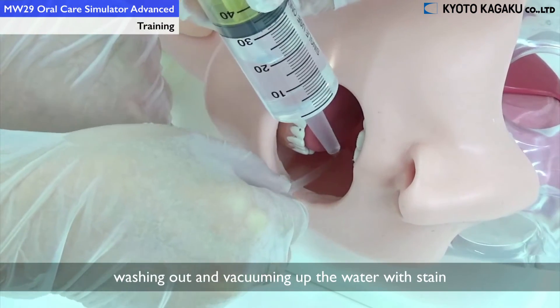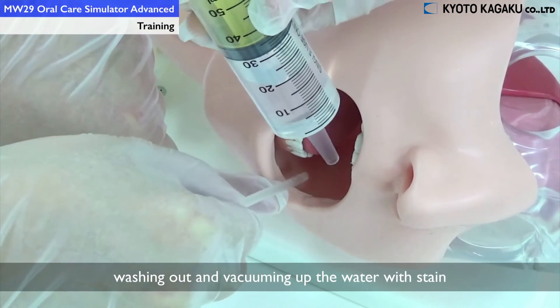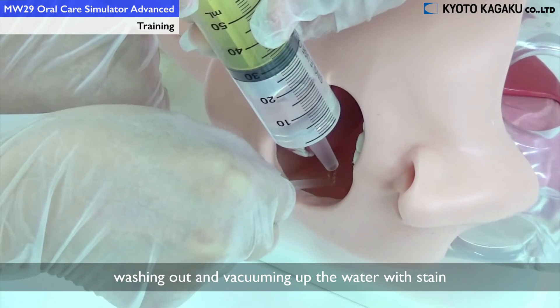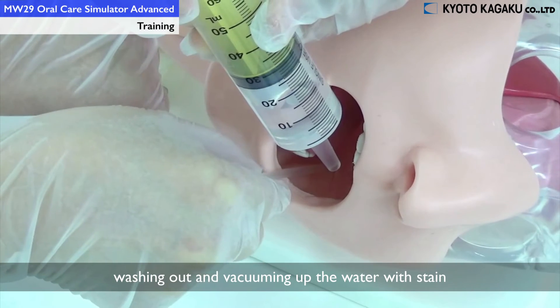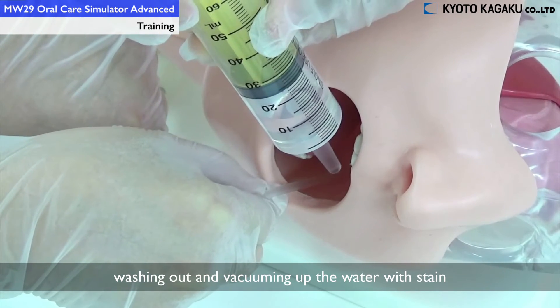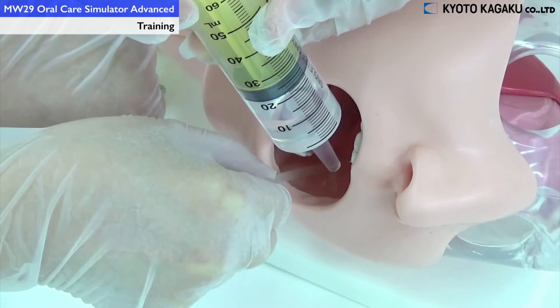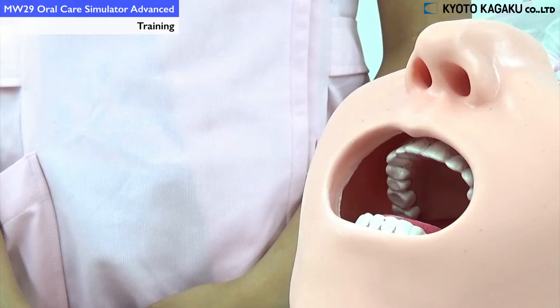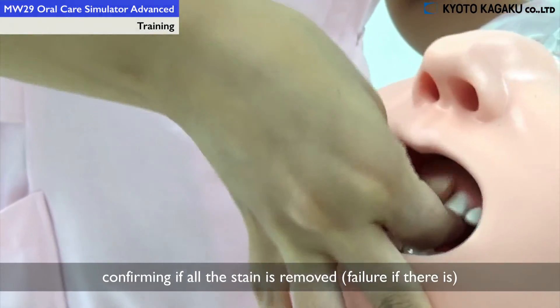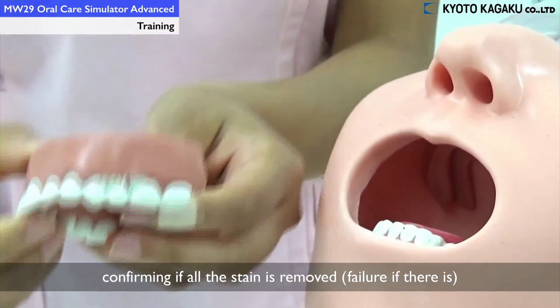This is how to practice rinsing and suction. You could confirm whether you have cleaned the tooth thoroughly or not.